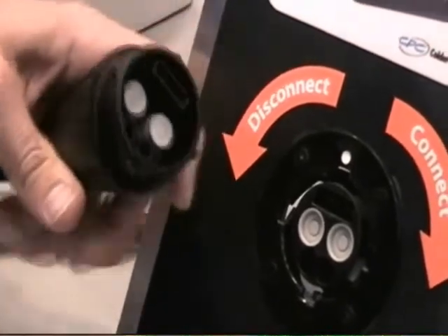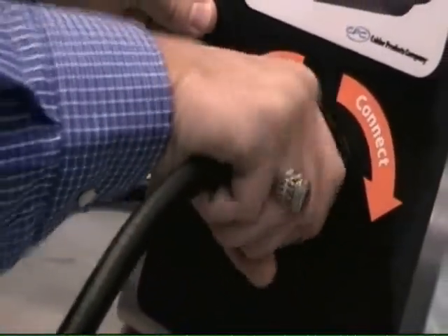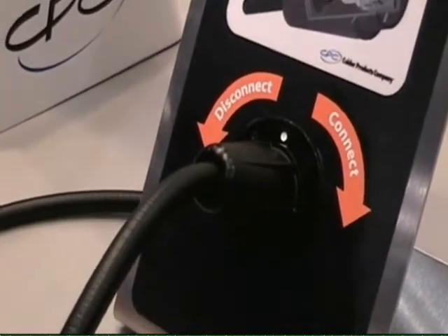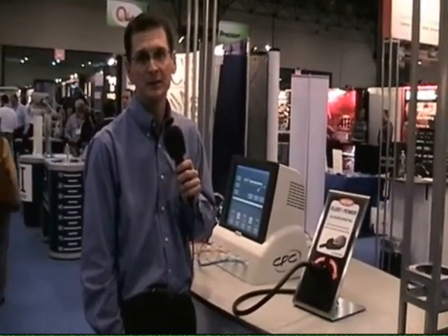The hybrid connection makes it very simple for the user to make a connection with a simple quarter turn. It ensures that you make the connections properly, each and every time. The hybrid connection from Colder makes multiple connections on a medical device easier and faster, enhancing the user's perception of your medical device and ensuring greater patient protection and safety for the patient.